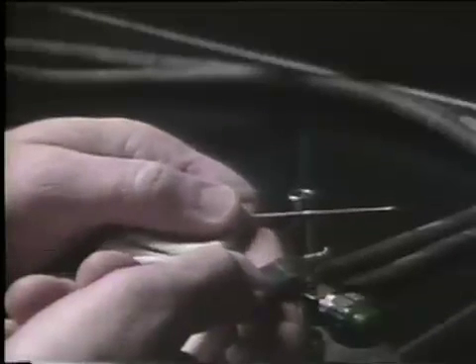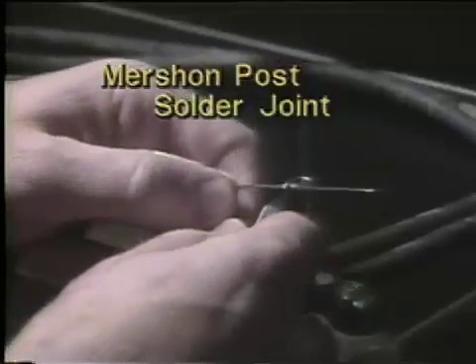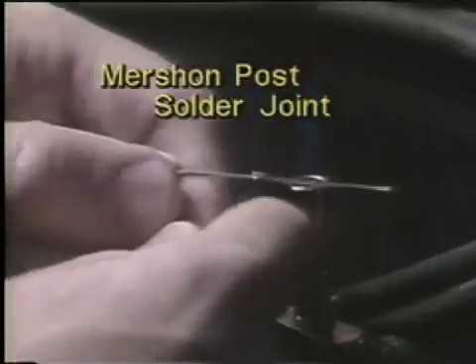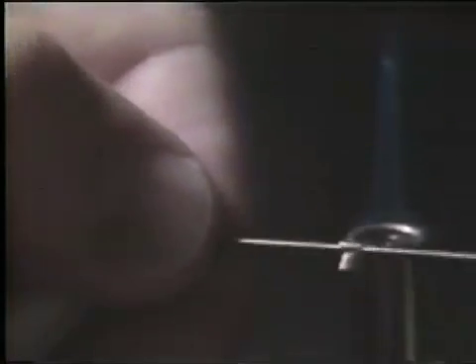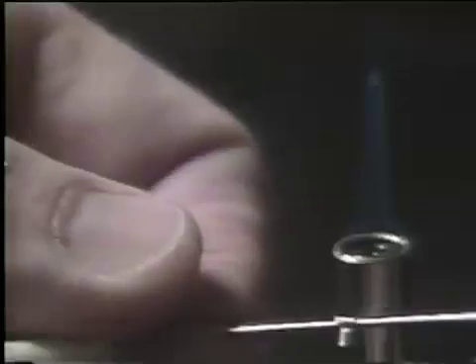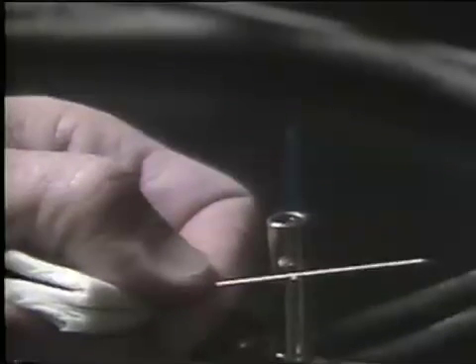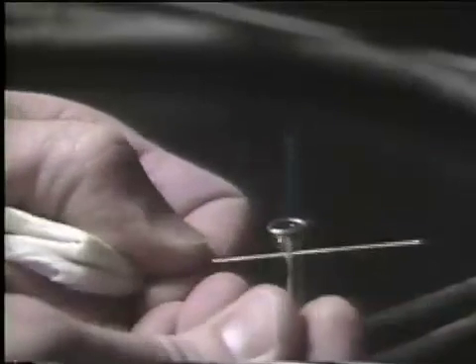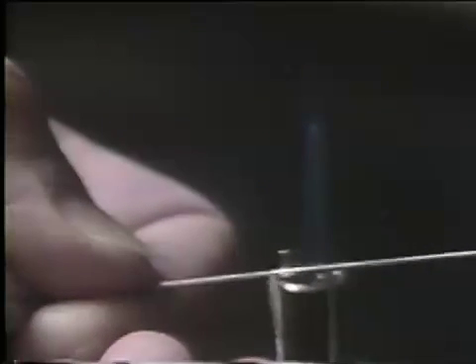To add the Mershon post to the main wire, you place the flange of the post onto the main wire and squeeze it into place with bird beak pliers, in the position that you want it. You then add gold flux to the flange area. Add flux only in the areas where you want the solder to flow — the entire edge of the flange is fluxed.